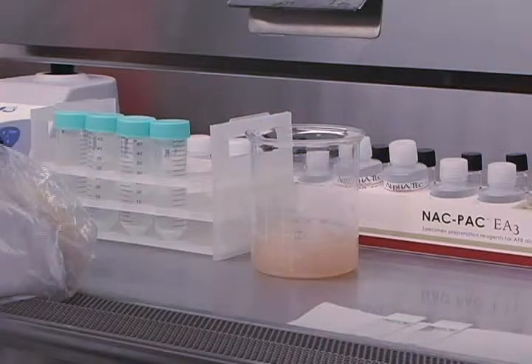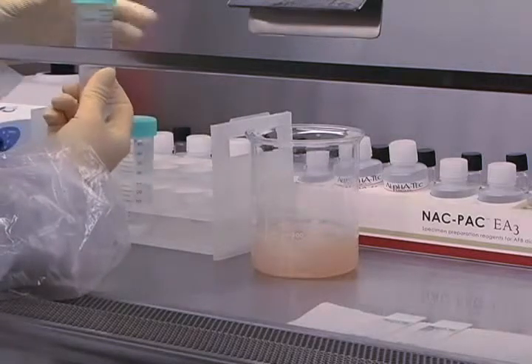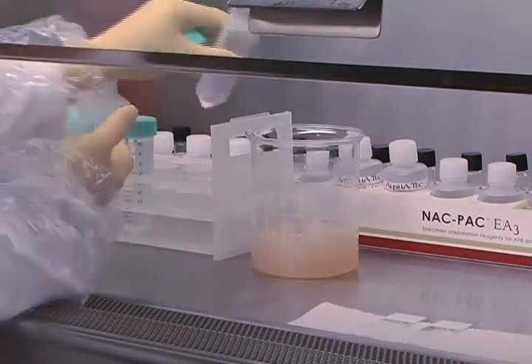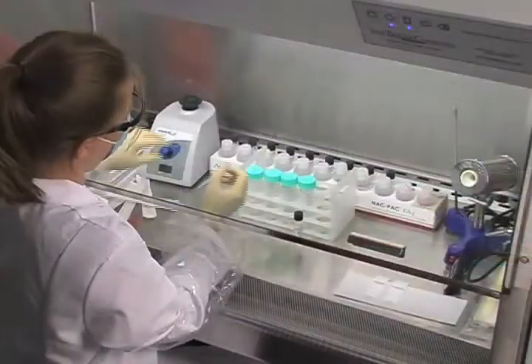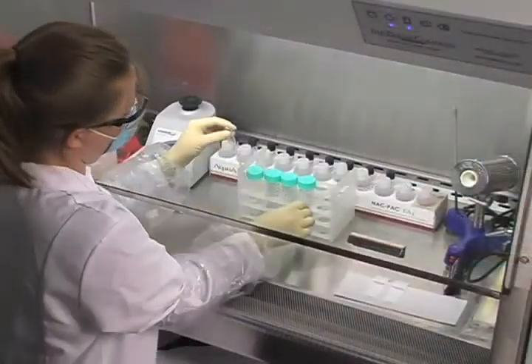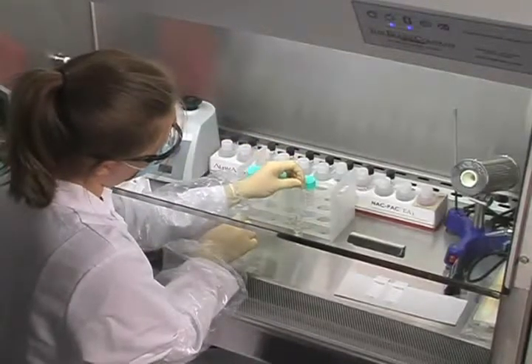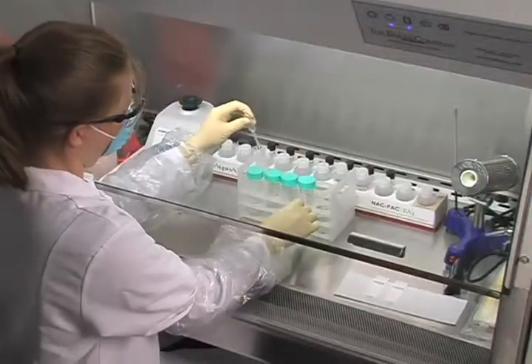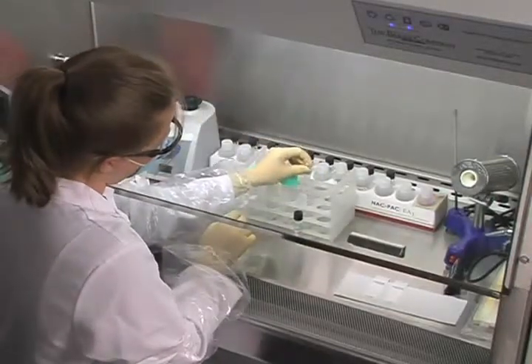Working in the biosafety hood, carefully remove all of the supernatant and discard it into an appropriate container holding a proper disinfectant. Be careful not to contaminate the specimens or disturb the pellet. Proceed with adding 3 mL of the pellet resuspension buffer to the specimen pellet and inoculating all slides, media, and bottles as described for respiratory specimens.